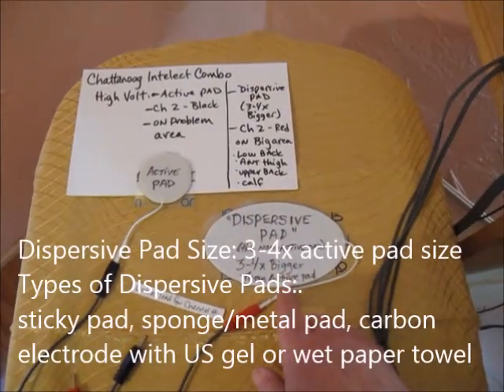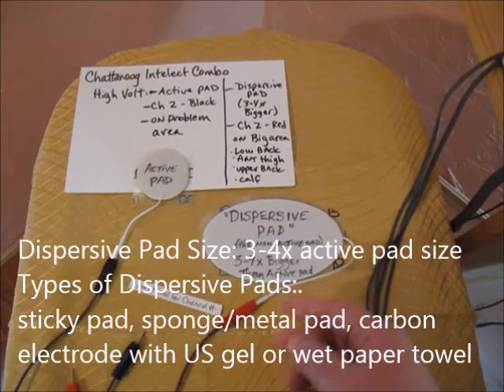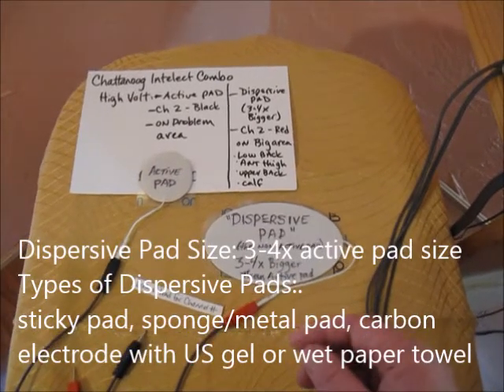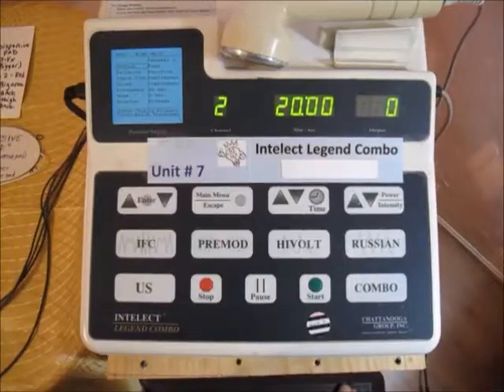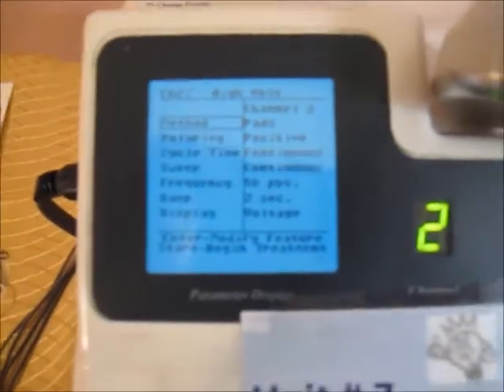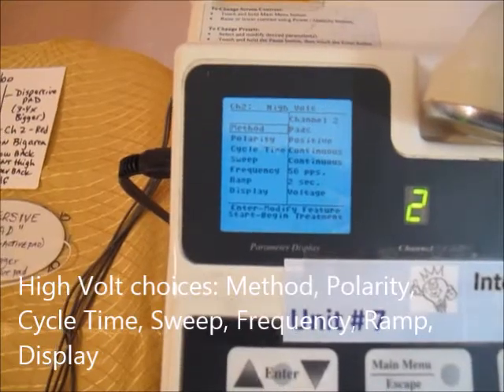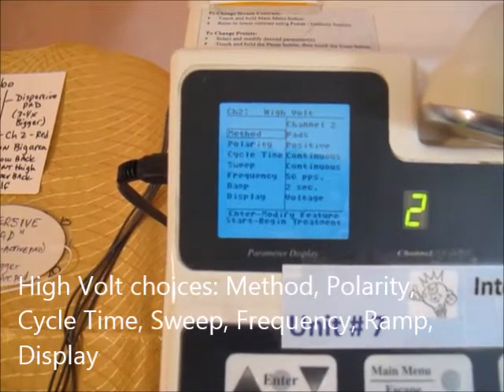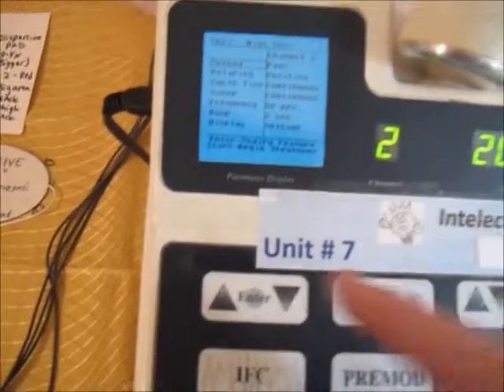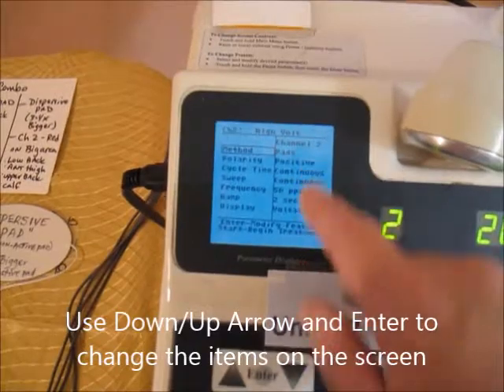The dispersive pad should be 3 to 4 times the size of the active pad. It could be a sticky pad, a sponge and metal pad, or a carbon electrode with ultrasound gel or a wet paper towel. On the HiVolt screen, there are several different choices: polarity, cycle time, sweep, frequency, ramp, and display. Each of these is controlled using the up/down arrow and then enter to change the values.